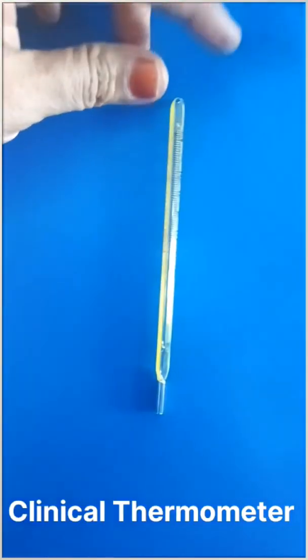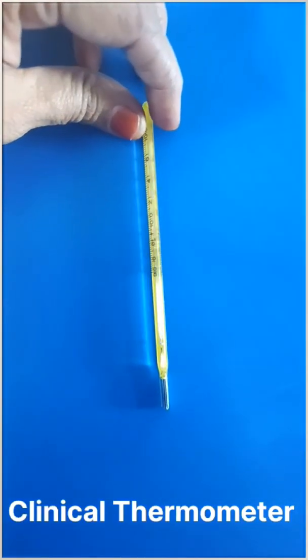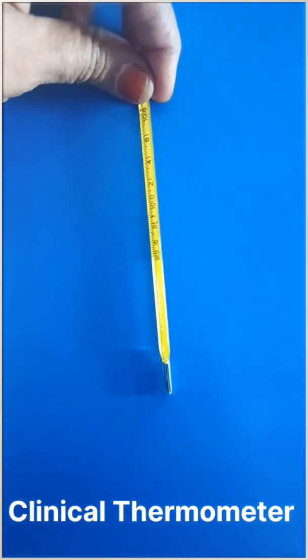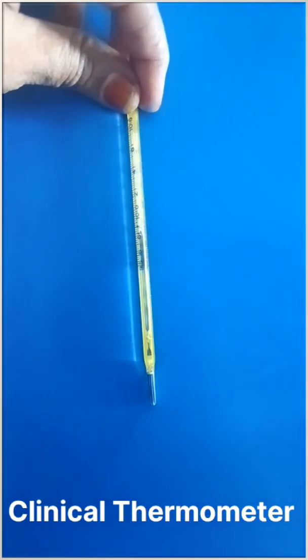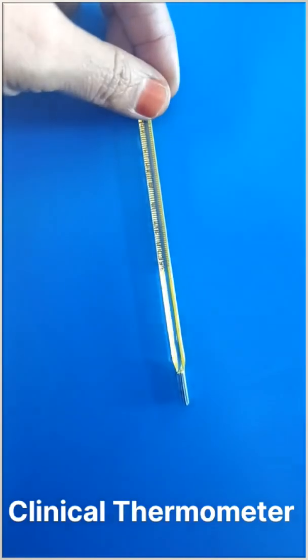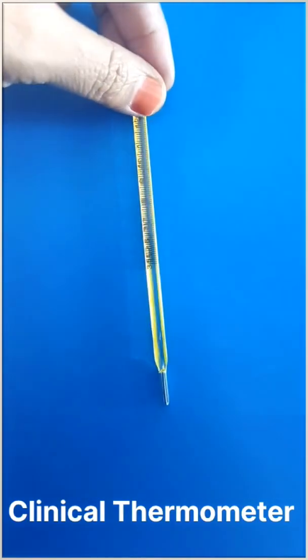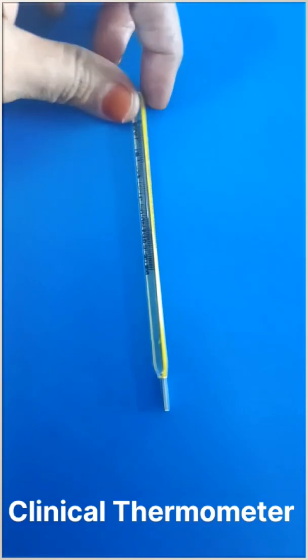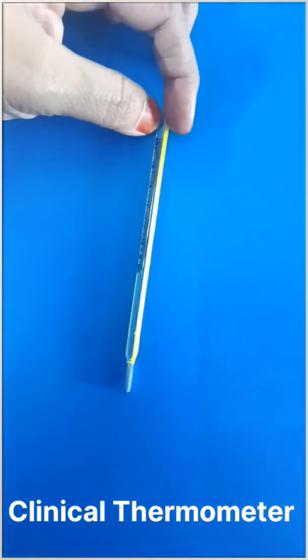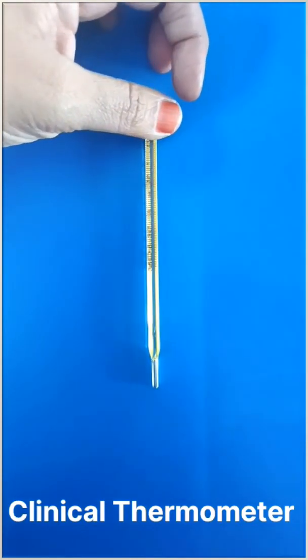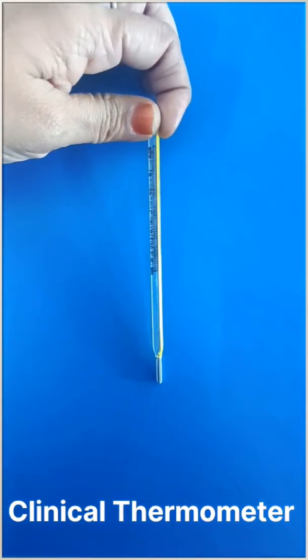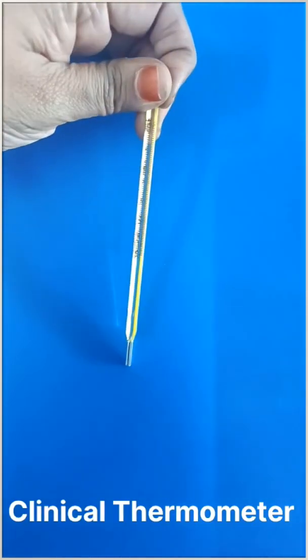This is a clinical thermometer. It is used to measure the human body temperature. We observe the reading from 35 to 42 degrees centigrade on this thermometer.